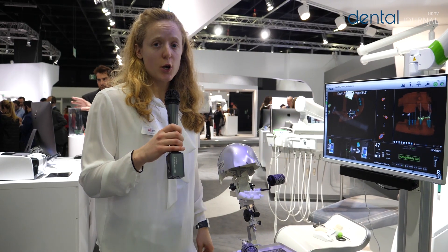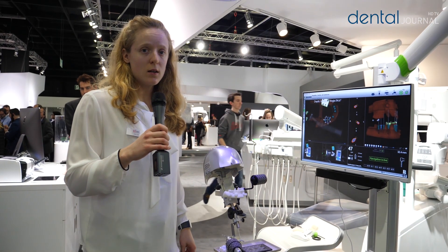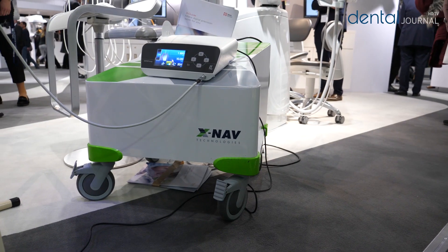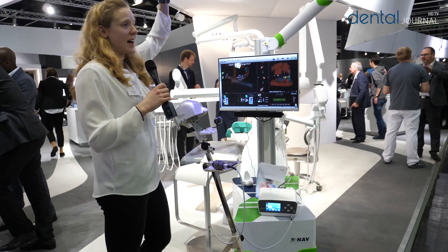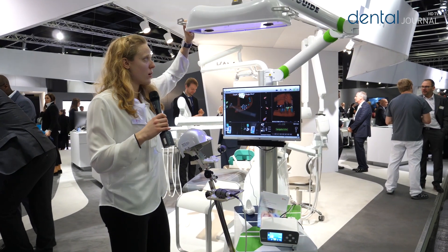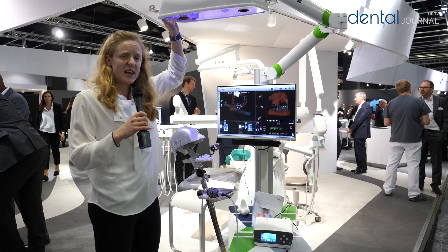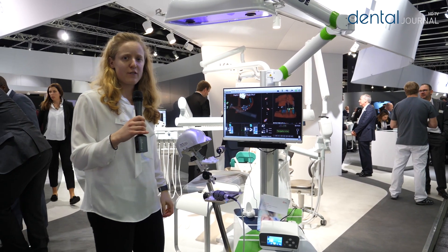The system was launched in Europe back in October of 2018. As you can see, it's a fully mobile system, so it actually has wheels — you can wheel it from room to room. It's very versatile. This arm can move around, so it can accommodate any clinical setting, any surgical room.